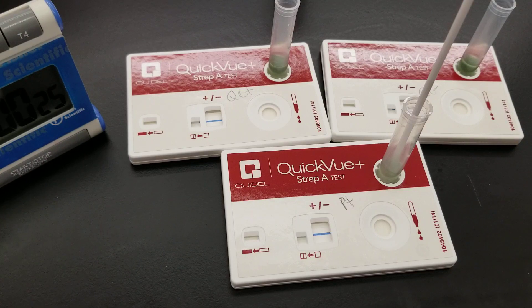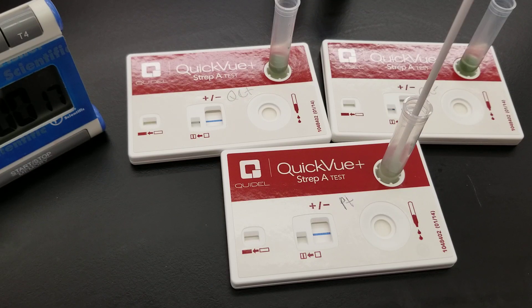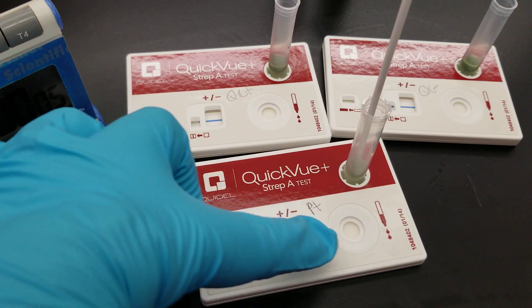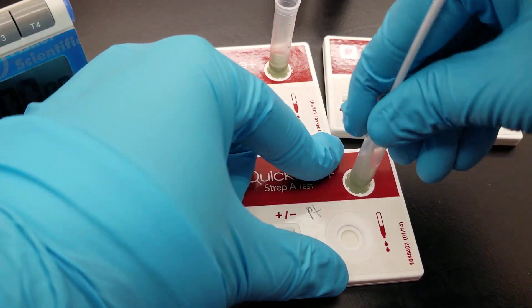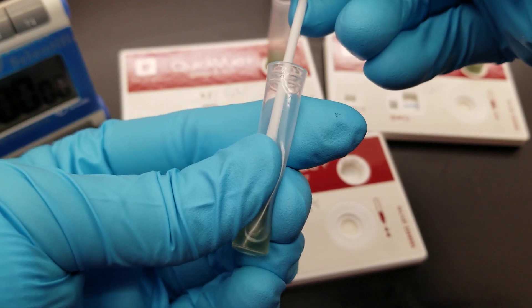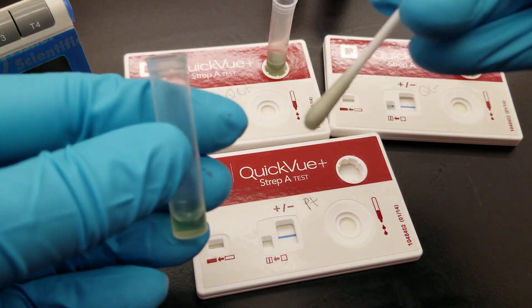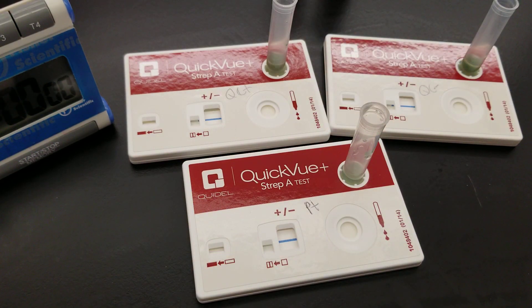At the end of this, what we're going to do is squeeze out as much liquid as we can out of the tip of the swab in order to make sure we have all the specimen we need to add to the window. We take the swab out — be careful not to spill it everywhere. Squeeze the tube and pull and twist, pulling out the swab tip and squeezing as much out of the tip as possible. That goes in the biohazard trash.